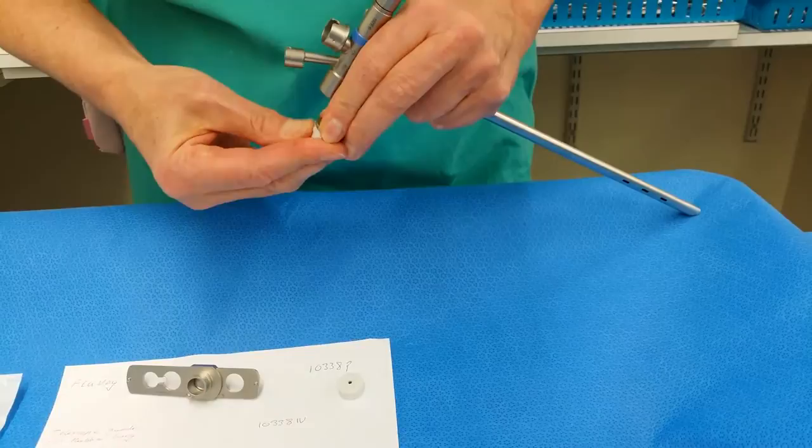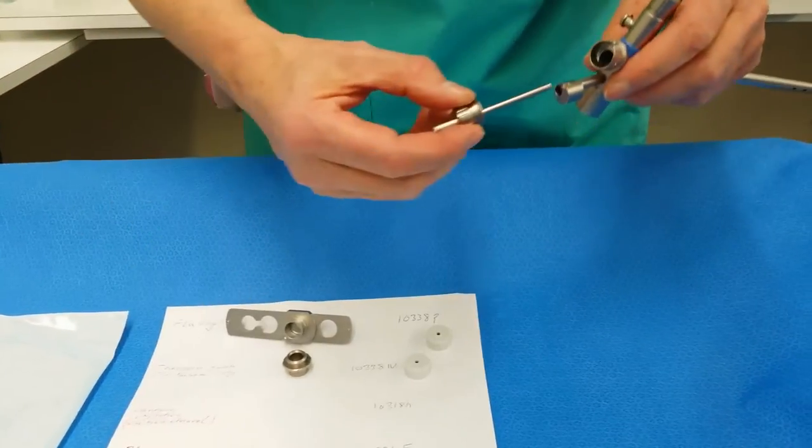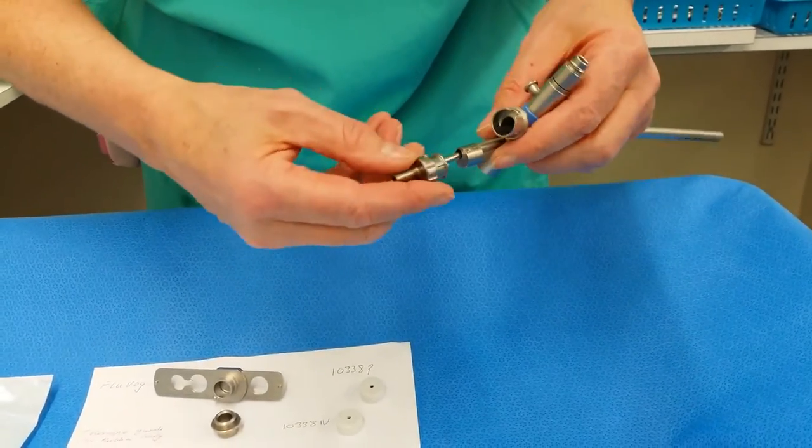And then you've got other connections. This is an injection connection that goes on the suction channel.